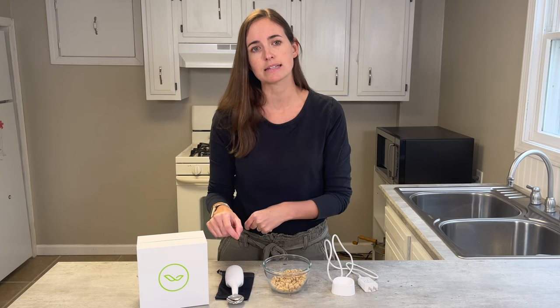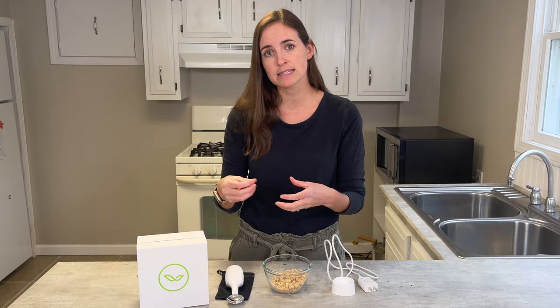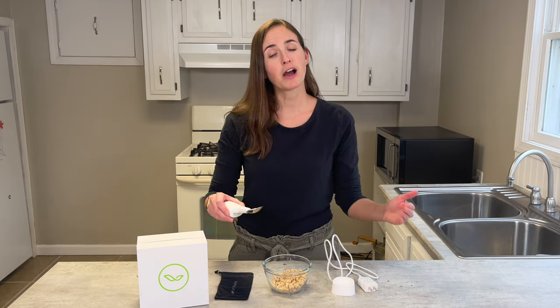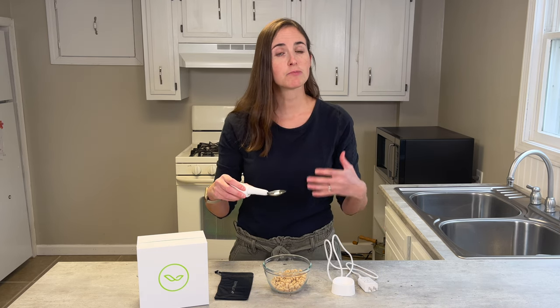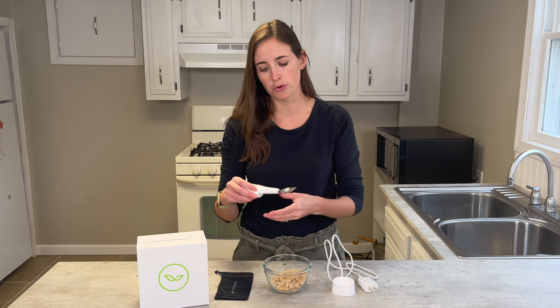It's definitely an expensive item and it may not work for you right away, so if you're interested and want to try it before you buy it, look into finding a local place that has an OT or speech therapist who works specifically with Parkinson's disease — they will likely have one of these for demo. You can use that to your advantage to make sure this is going to work for your specific needs versus spending $200 and finding it doesn't solve your problems.